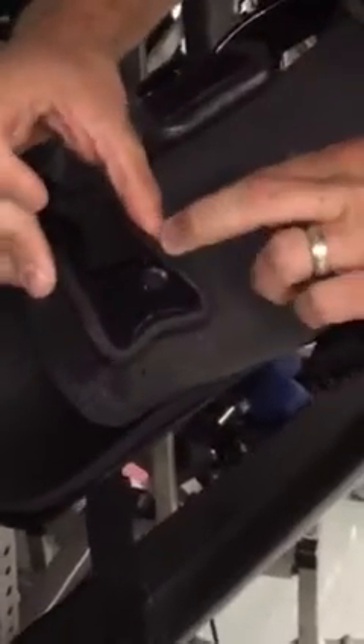This one you'll see the biggest difference. This strap as it comes across will be hitting the leg — that's what we want to avoid.